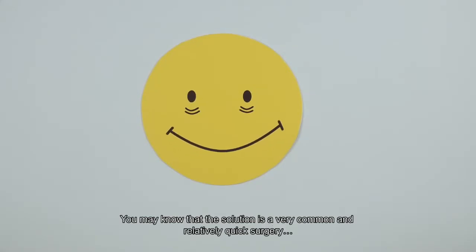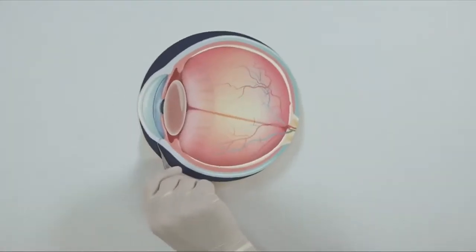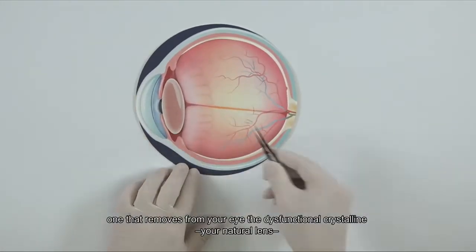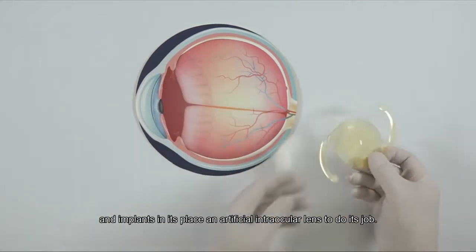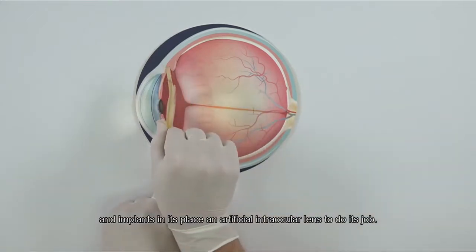You may know that the solution is a very common and relatively quick surgery, one that removes from your eye the dysfunctional crystalline, your natural lens, and implants in its place an artificial intraocular lens to do its job.